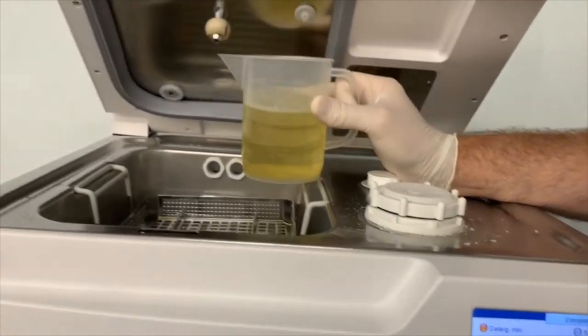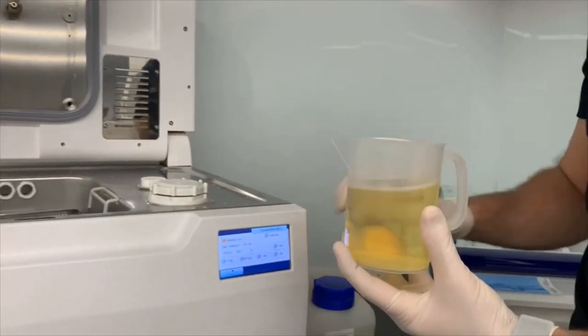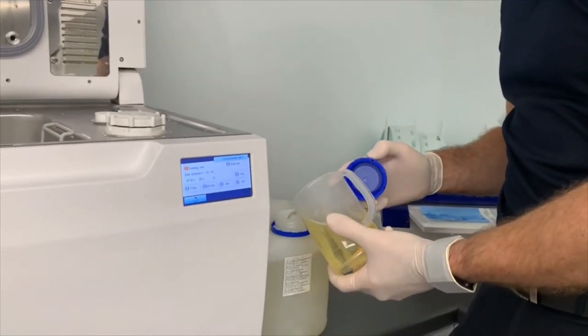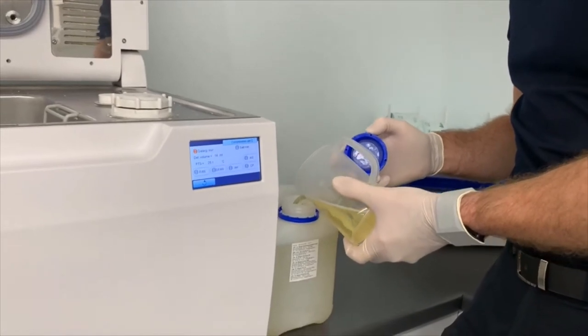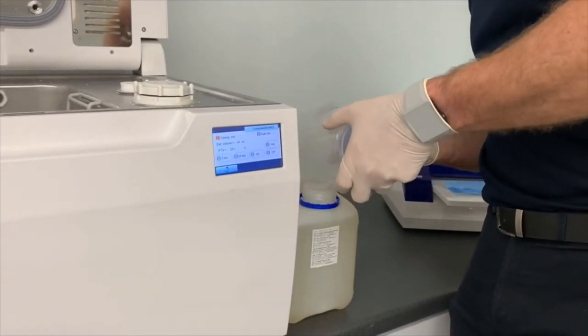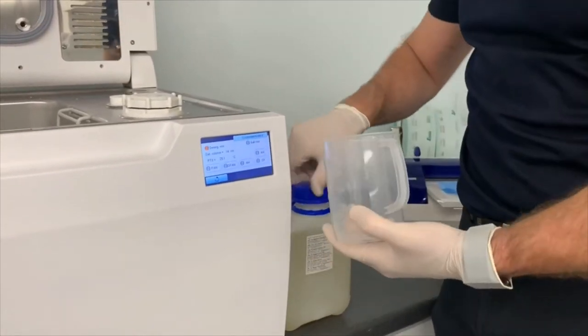Okay, now we can keep this chemical. There's nothing wrong with it. So just tip it back into the bottle that it came from originally. And then we'll give the beaker a bit of a clean out and fill it with warm water.